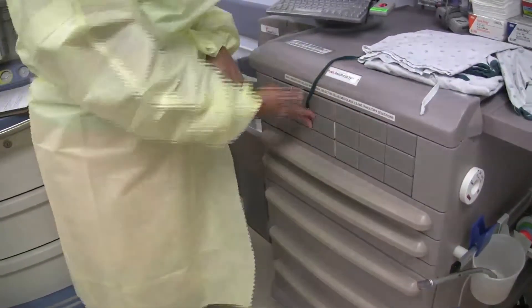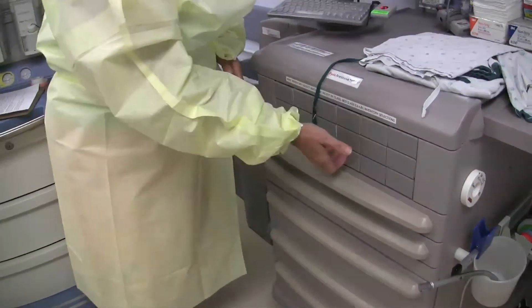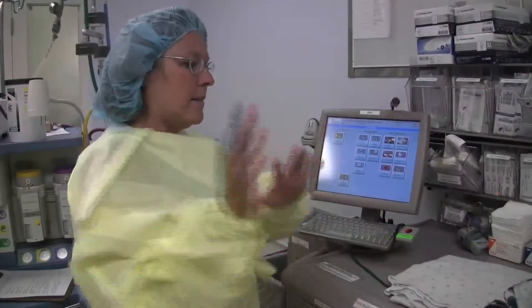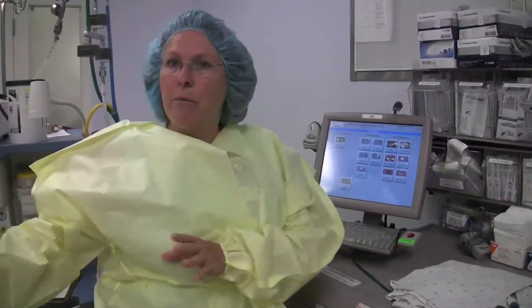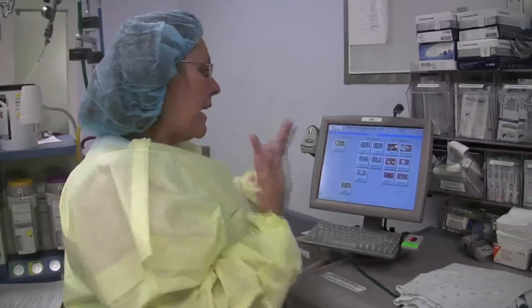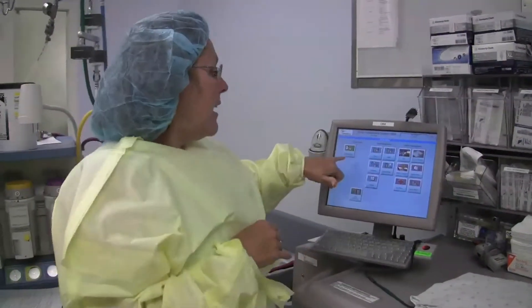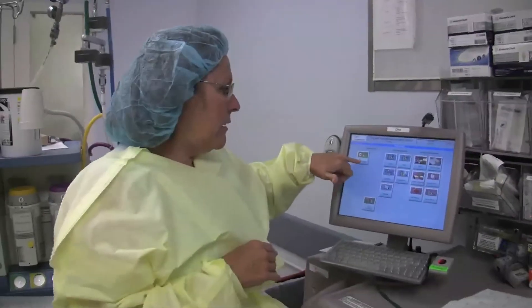The drawers it did not unlock — it does not unlock any controlled substances. I can't get those open. So at this point, if I have a patient getting ready for surgery on the table, I can remove drugs for a particular patient.